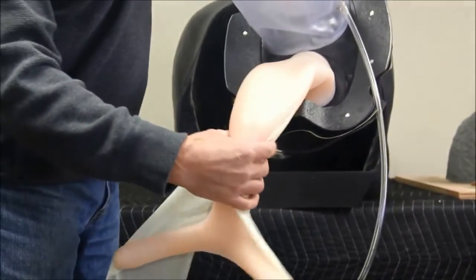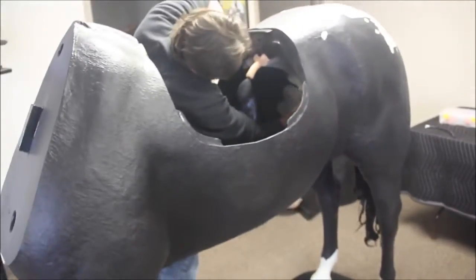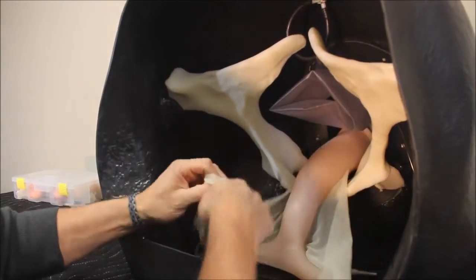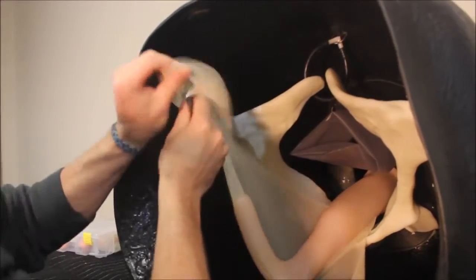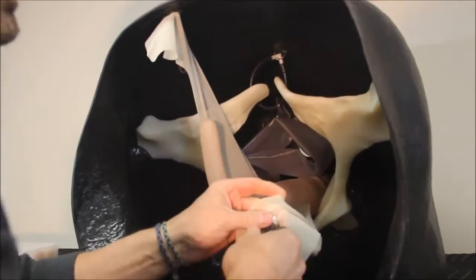It also has a palpable cervix. The horse has a replica plastic pelvis that sits in the dedicated mounts and has one Phillips screw in the base of the pelvic floor. The magnets attached to the broad ligament connect with those located in the body wall to suspend the uterus.